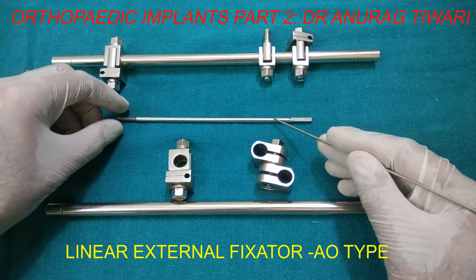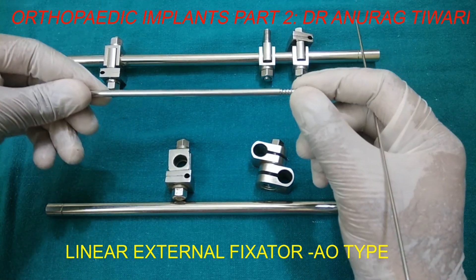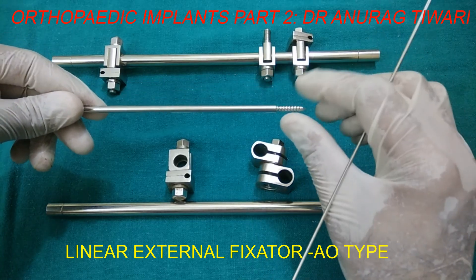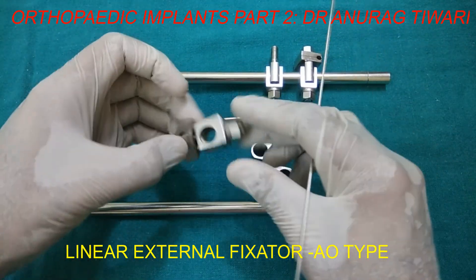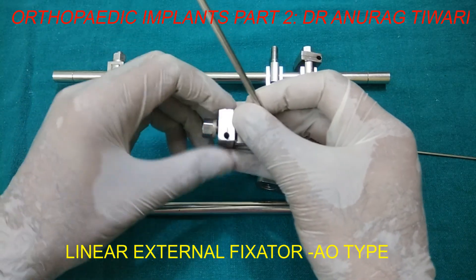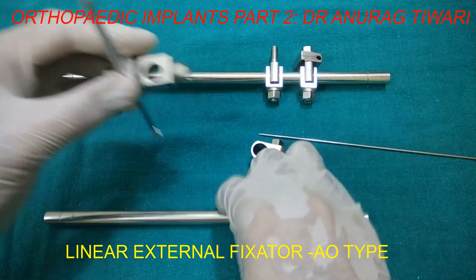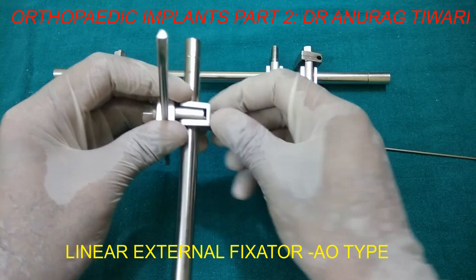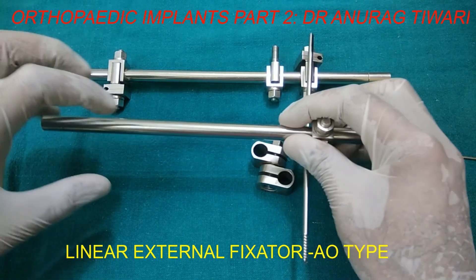This is the Schanz pin. The identifying feature is it is blunt at one end and sharp at the other end, and where there is a sharp end there will be threads for purchase in the bone — it could be cortical or cancellous depending upon the pitch. This is the rod with connected universal clamp. This is the pin-to-tube clamp. This is how we attach the pin to the clamp and the connecting rod or tube.